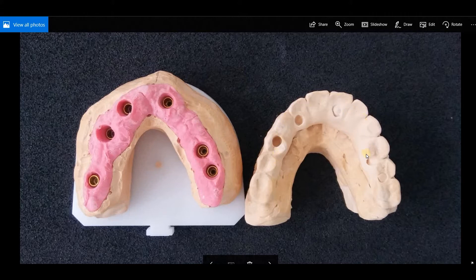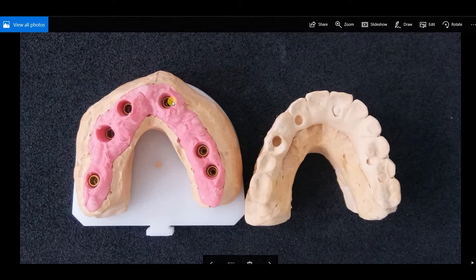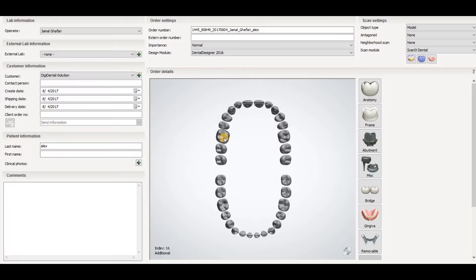If you have the temporary you can use that to define the implant positions. In this case we have implants on tooth 16, then 14, then 12, and on the left side we have 21, then 24.